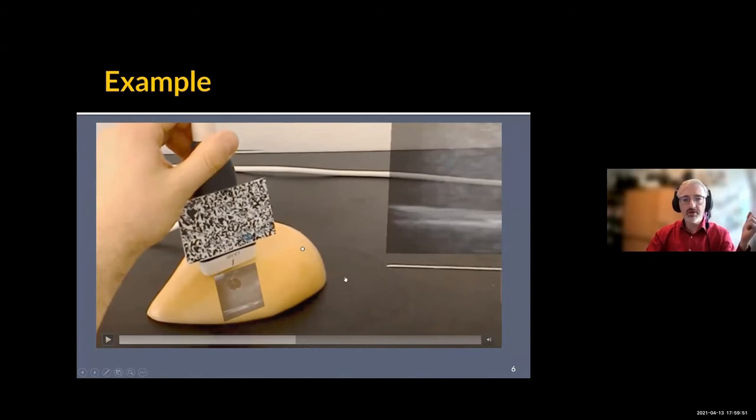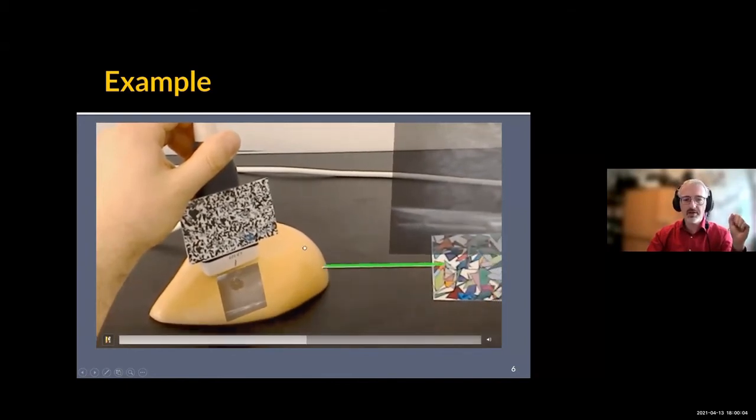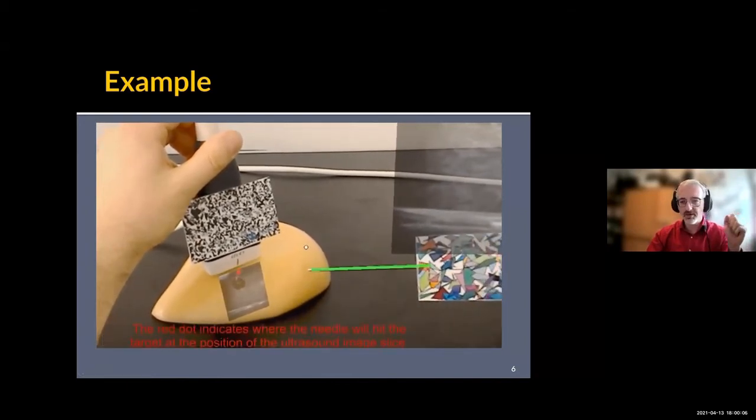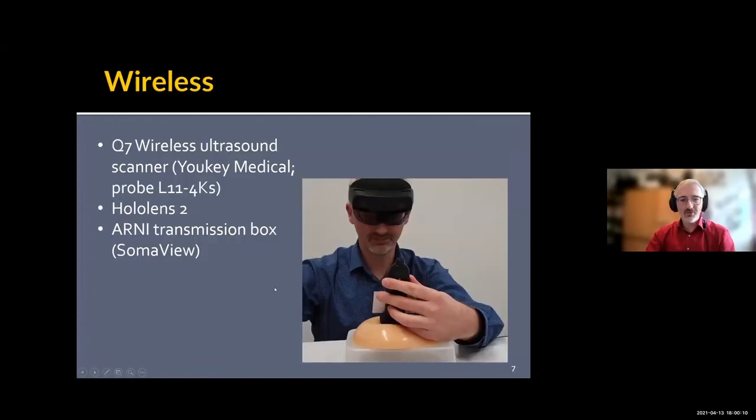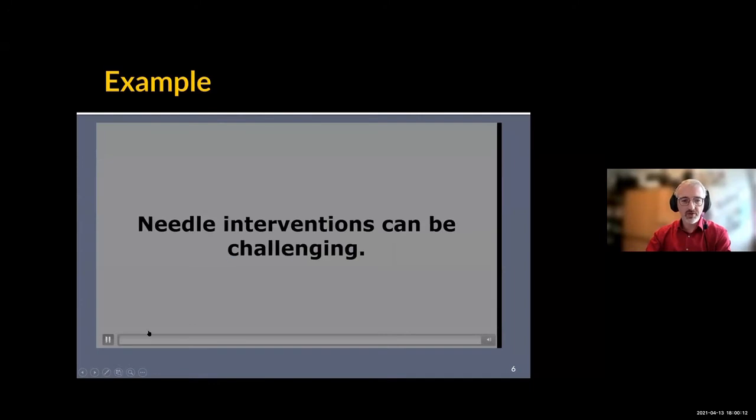What is maybe more interesting when talking about needle interventions is you still have the problem of where to move the needle directly into—in this case, mass inside the phantom. What we added here is something like a navigation system.